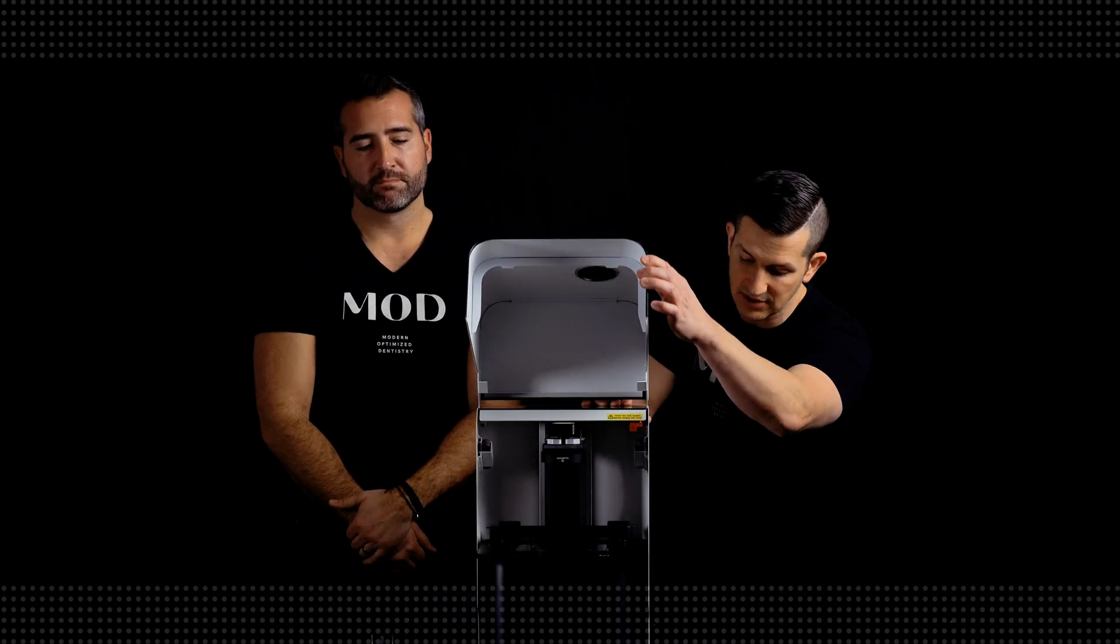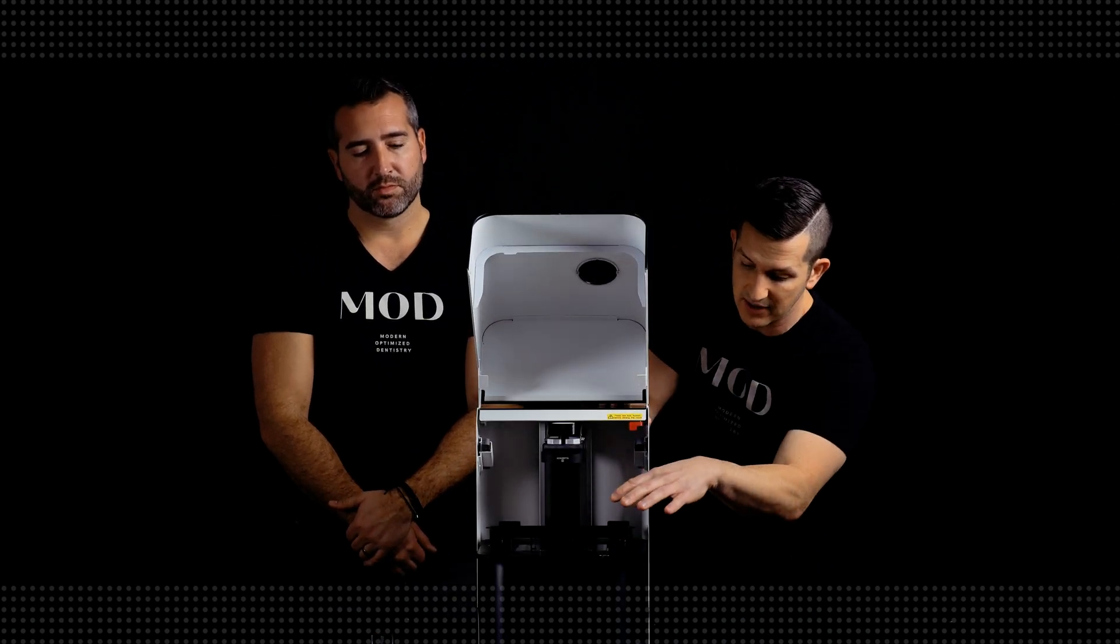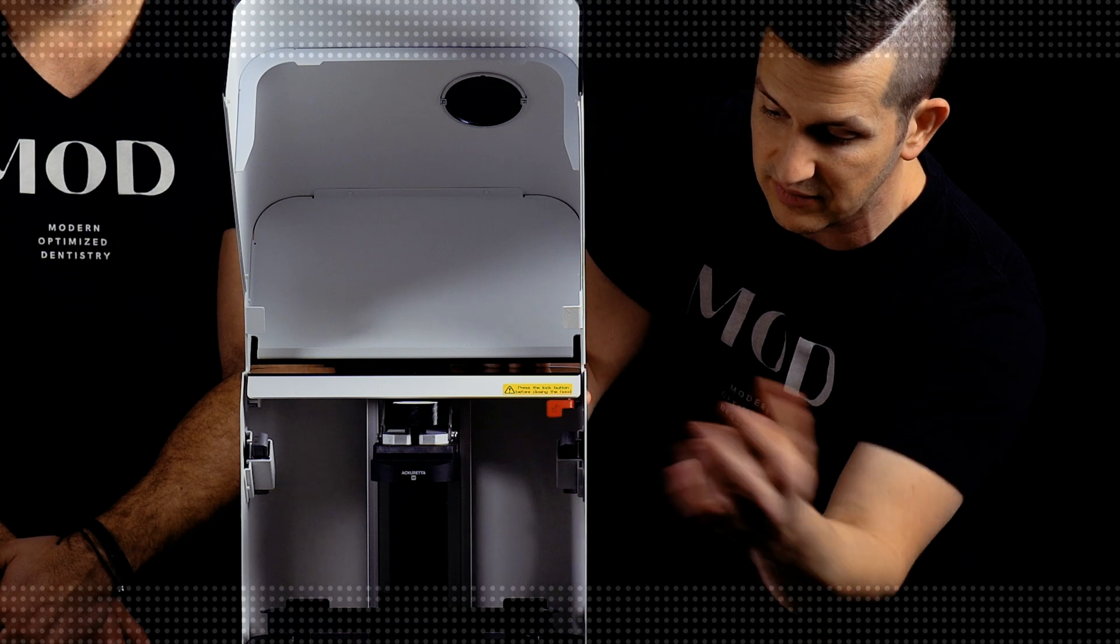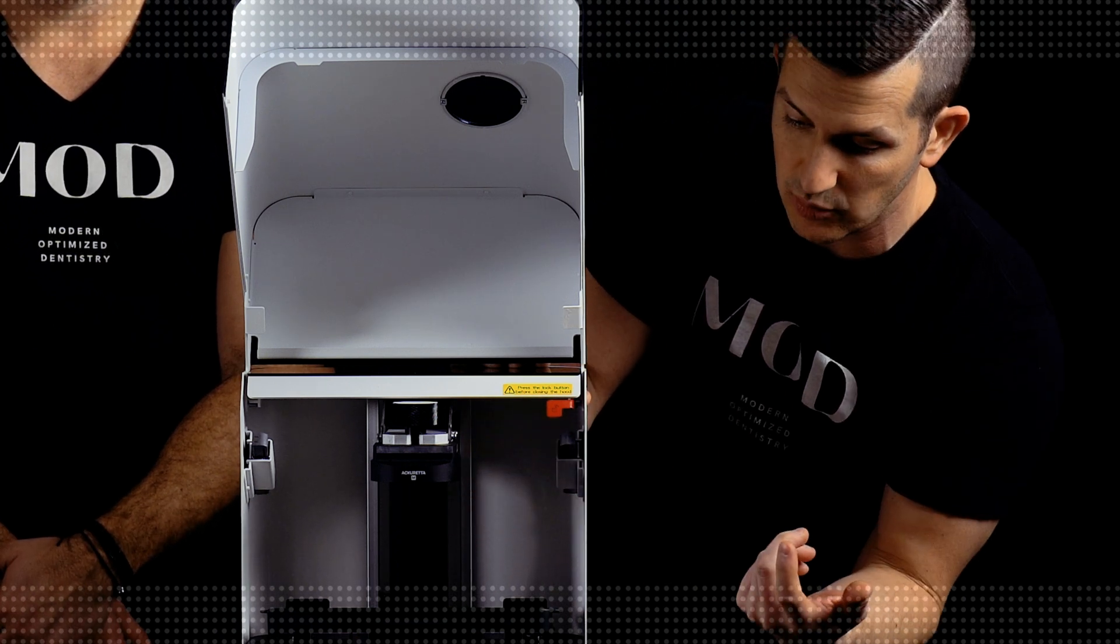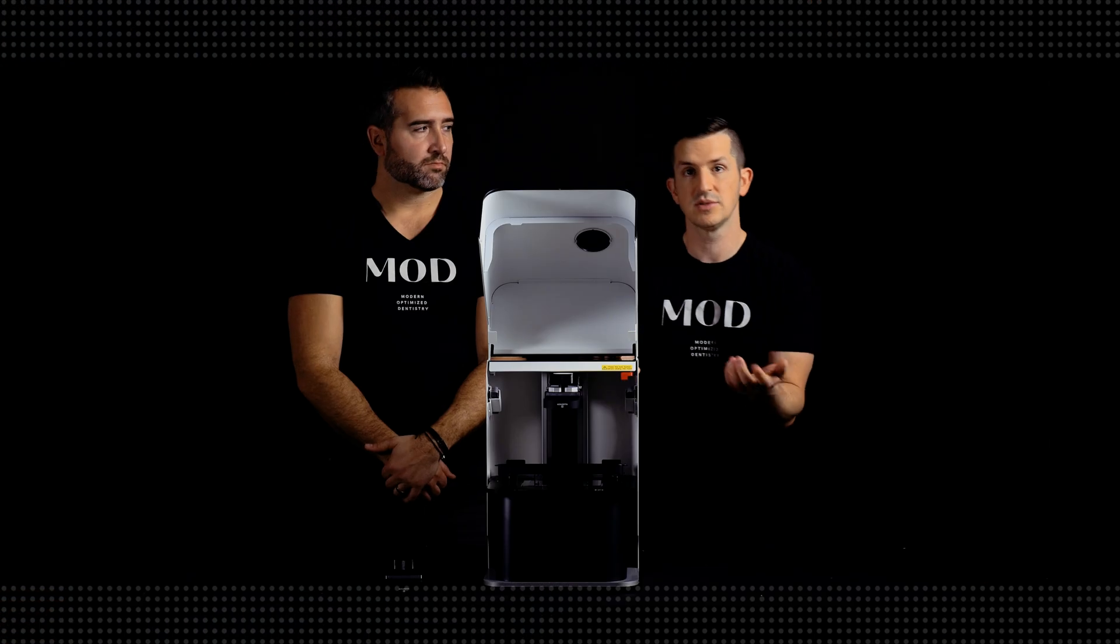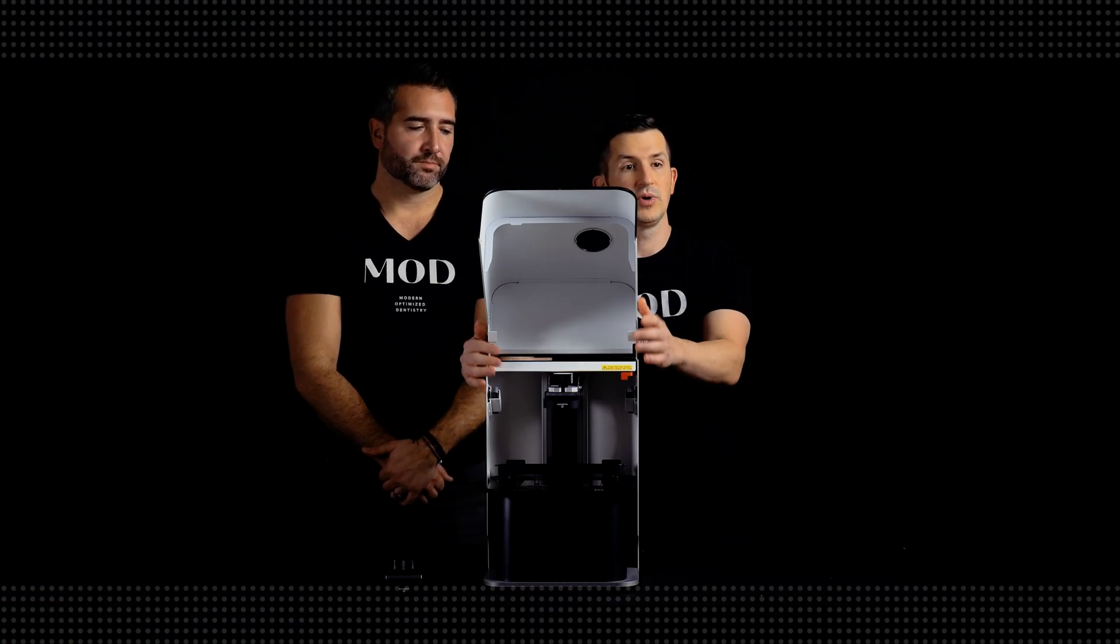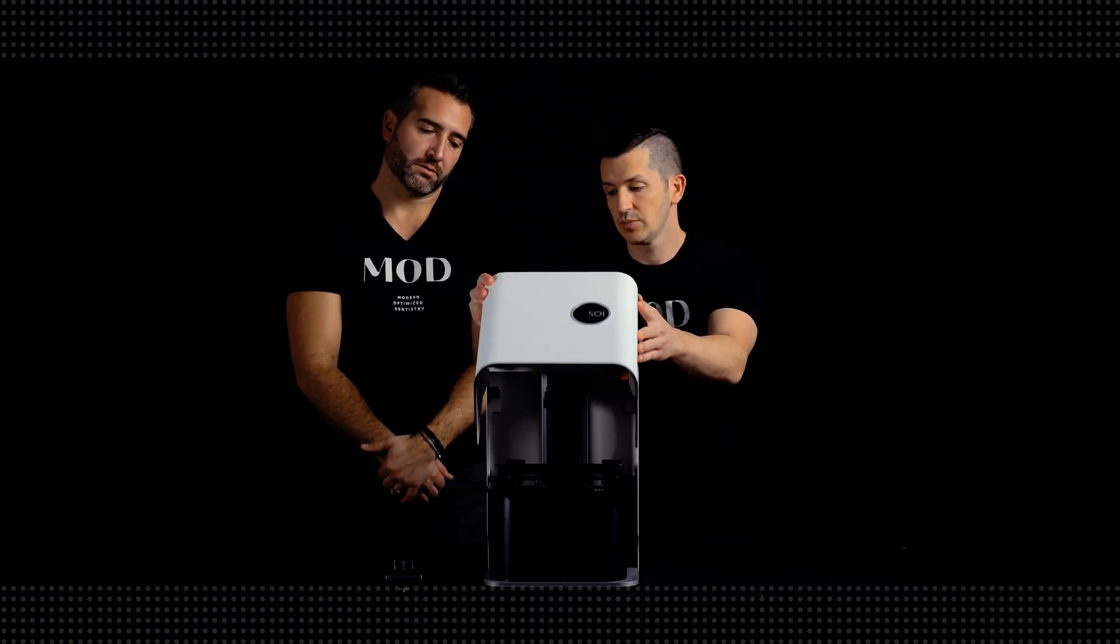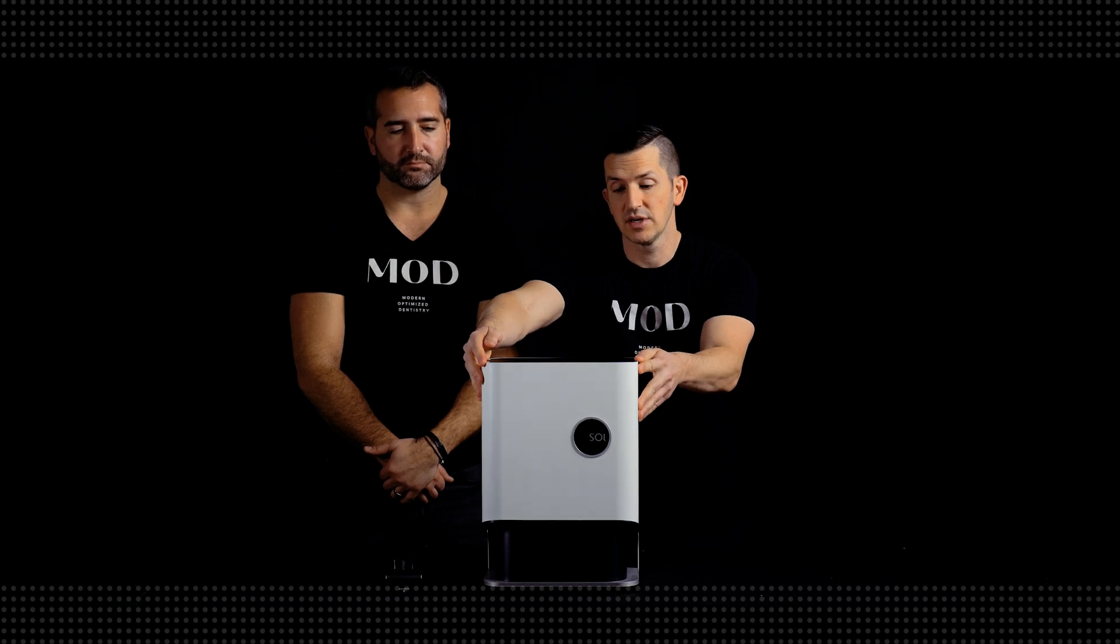One of the other concerns we have is the lack of safety mechanisms to protect the monochrome LCD screen. If the vat were to break or if you were to pull the vat out and have resin dripping from your build plate, there's nothing to protect that screen from getting damaged or destroyed. It's not unusual within the printer space, but definitely an improvement could prevent accidents or problems with the printer.